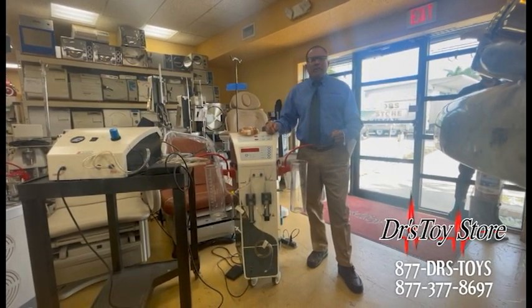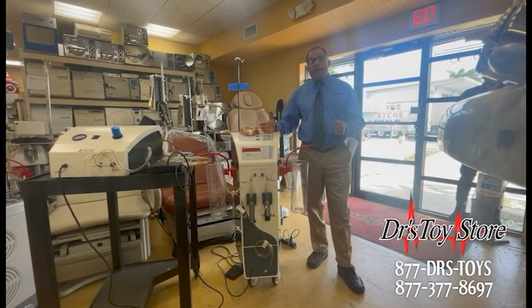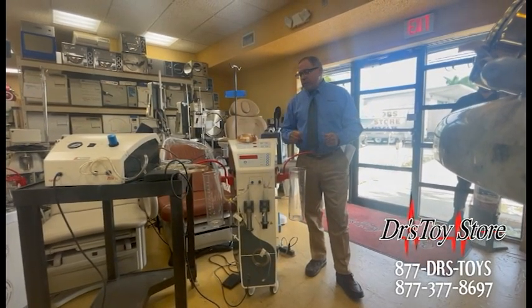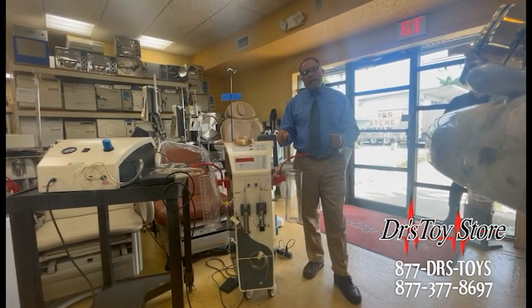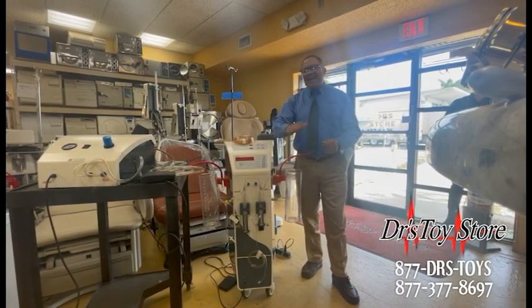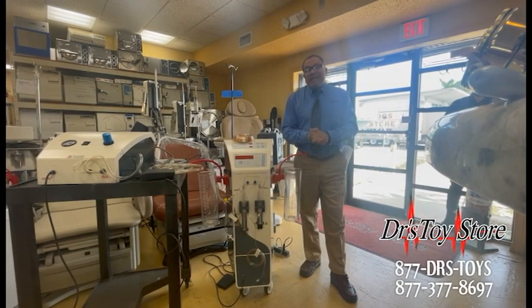It shakes more than anything, and doctors like Dr. Delvecchio have come and bought a few from us. They like them for doing Brazilian butt lifts — to pull the fat out and put it back in quickly. You can turn it up or down as far as the power, so you can have it real low or real high. It has more vibration than all of them — three times as much power.